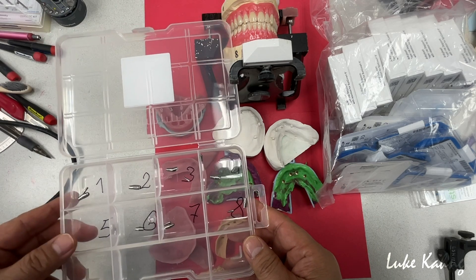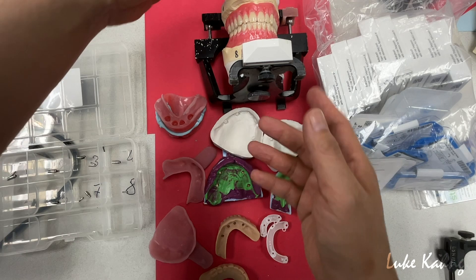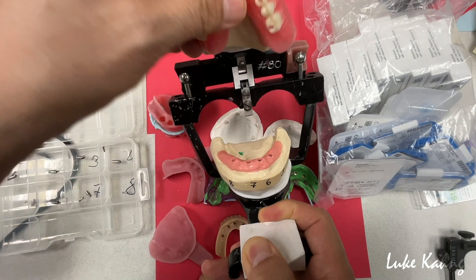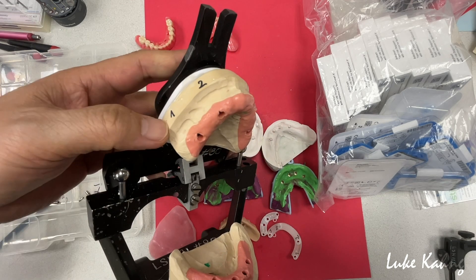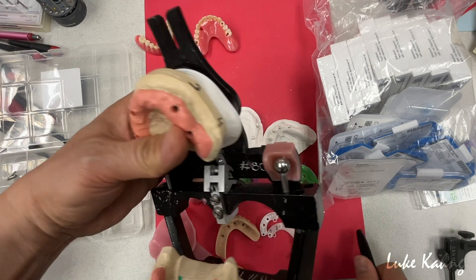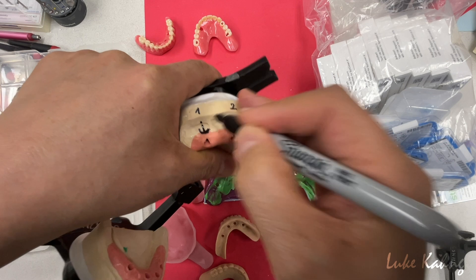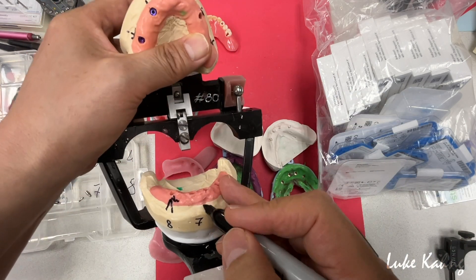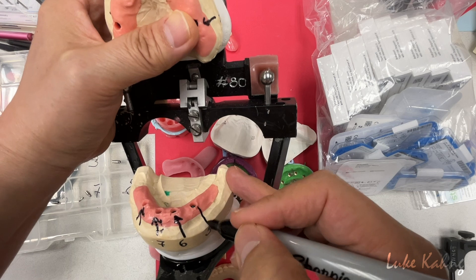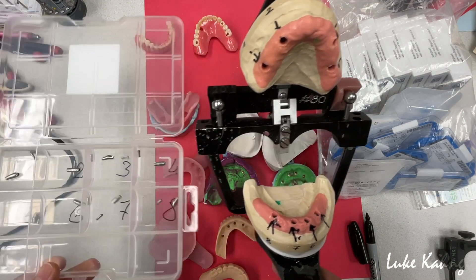And then provided about the conus implant — this is a very specific design. One through eight. So here's a lot of parts. Doctor provides us a lot of components. Here's the index. What I would like to discuss with this case is eight implants. We put down the number one, two, three, four — just like that, I have to indicate it so doctors know. Number four, number three, number two, number one. Here same thing: eight, seven, six, five.